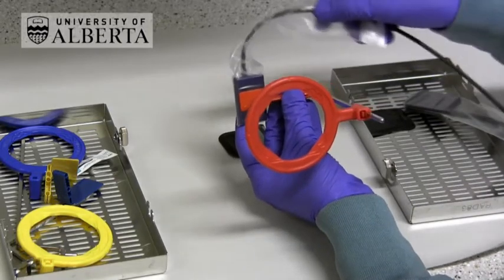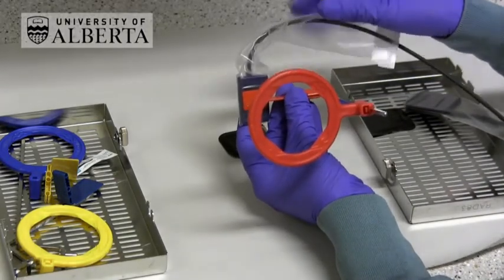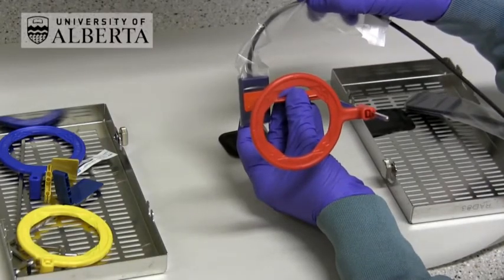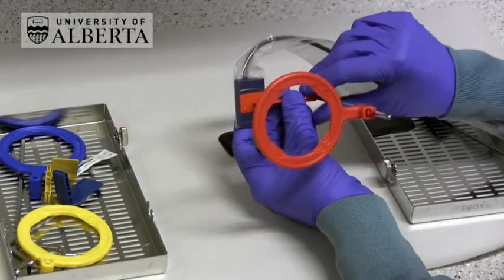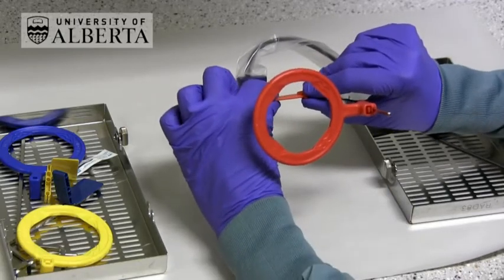Always make sure that the fiber optic cable from the direct sensor is coming out of the top of your assembly so that the patient can close completely together onto the bite block.